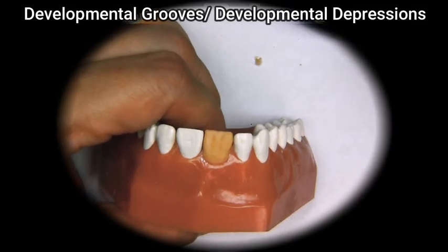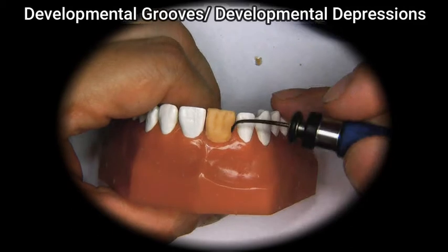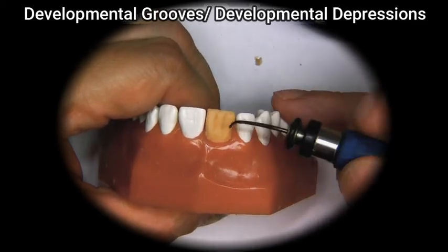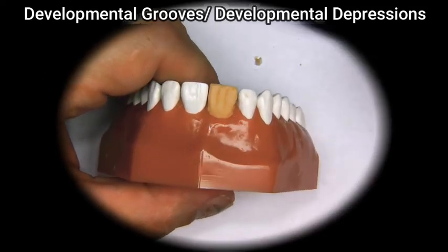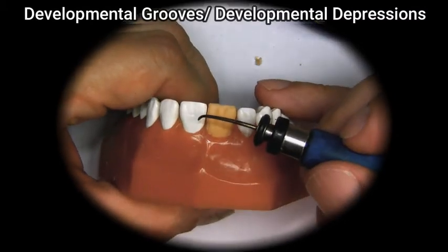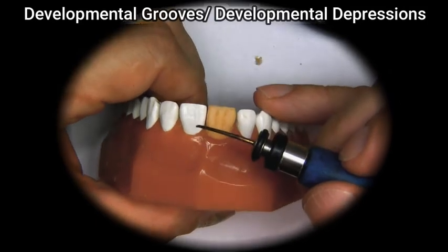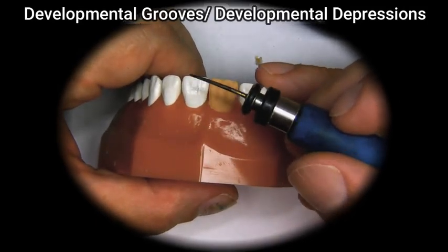Now, for anterior teeth, the developmental grooves are not very line-like. What we have to do is blend them so they are less obvious. As we see on the adjacent teeth, the developmental grooves are like little depressions that run vertically on the tooth.